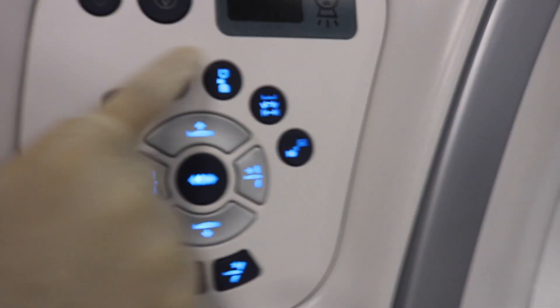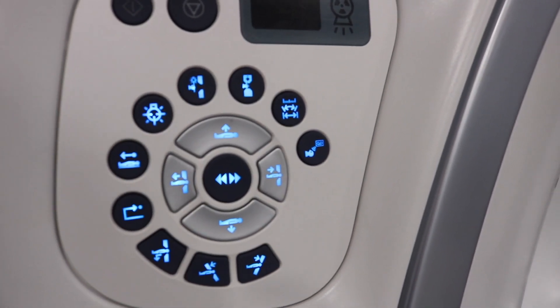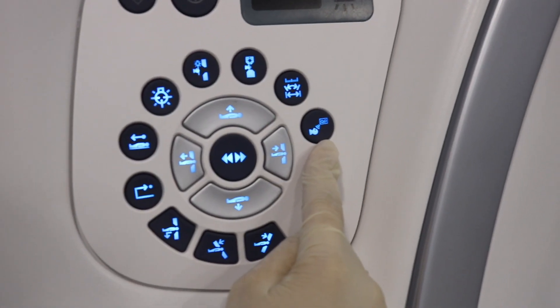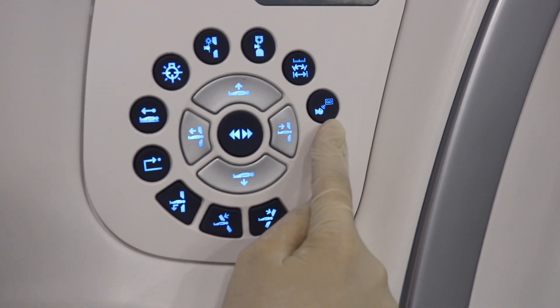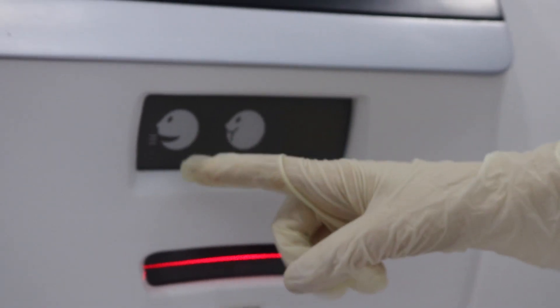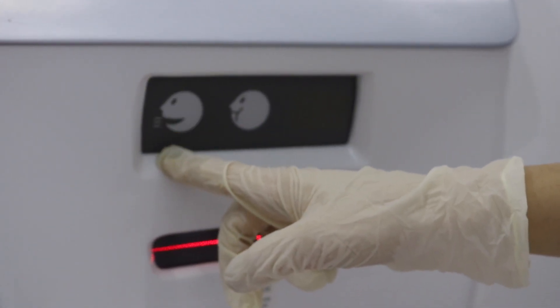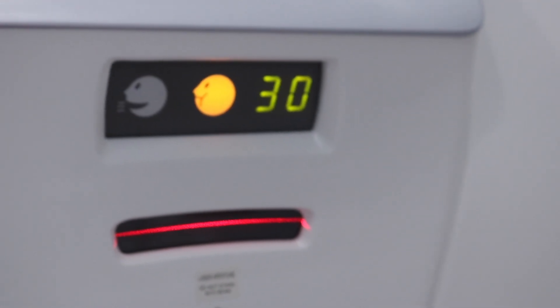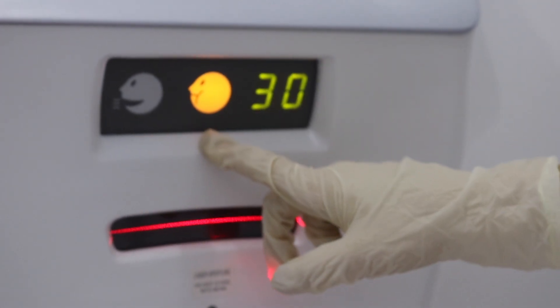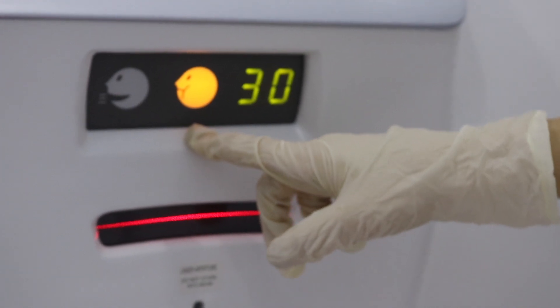These three buttons are for external landmark, internal landmark, and calibration. Lastly, you have this button, known as the microphone or the breathing light demo. If you press it once, it indicates the microphone is on. And if it is pressed twice, the breath hold time indicator is switched on.